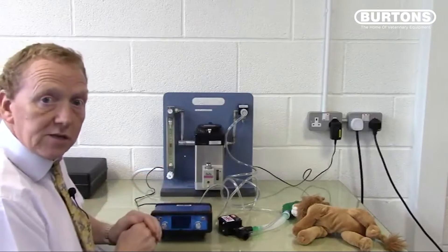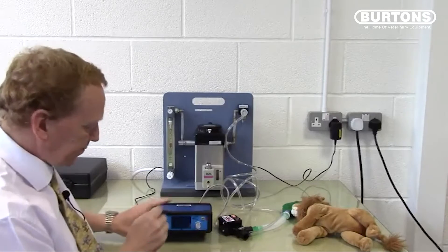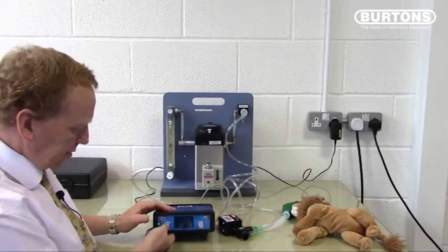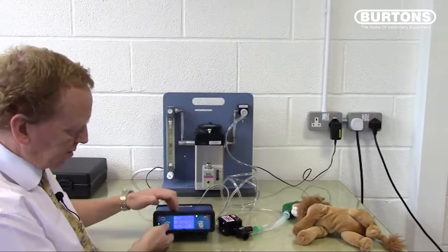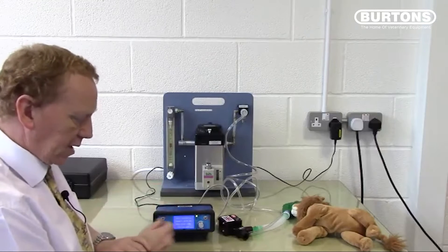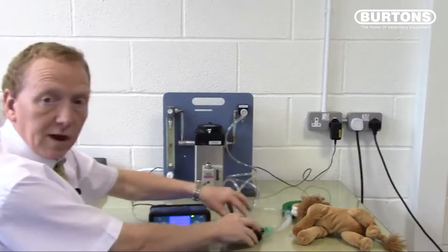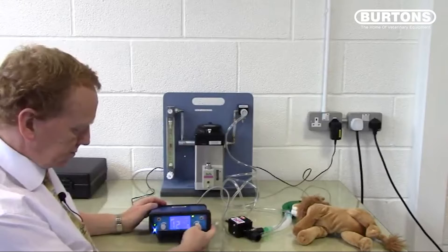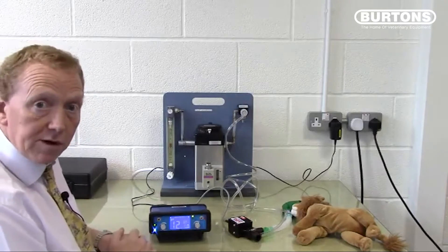The valve may be exchanged or repaired during warranty, in which case it will need to be zeroed to the machine when received back. To zero the valve, turn the unit on keeping the left hand knob pressed in. The normal screen comes on, then the user data, and then a screen that says auto-calibration. Connect valve and press right knob to continue. Make sure the valve is connected, there is no pressure or air flowing in the system, and press the right hand knob. That creates a valve calibration — it says zero at the bottom — and we're now ready to run.